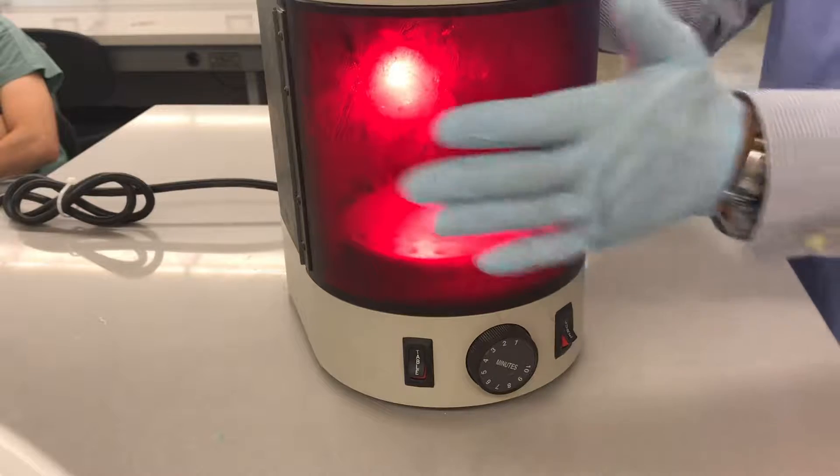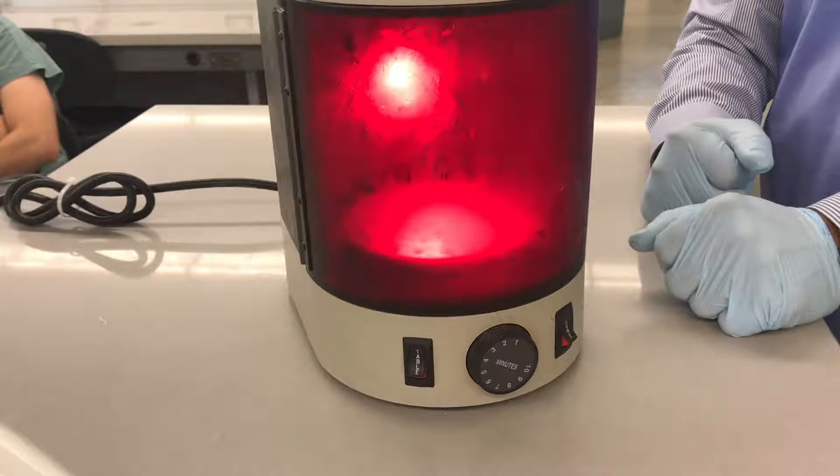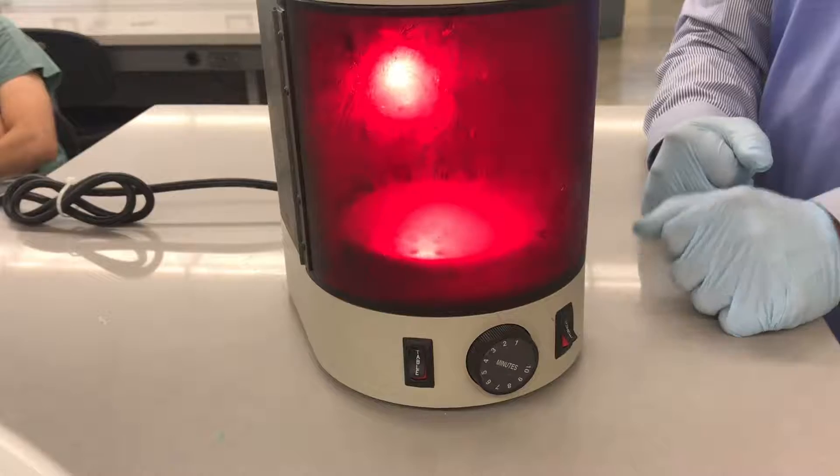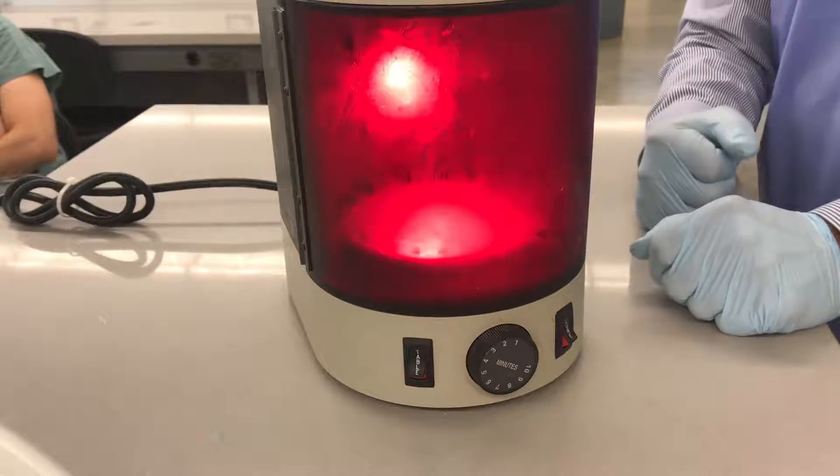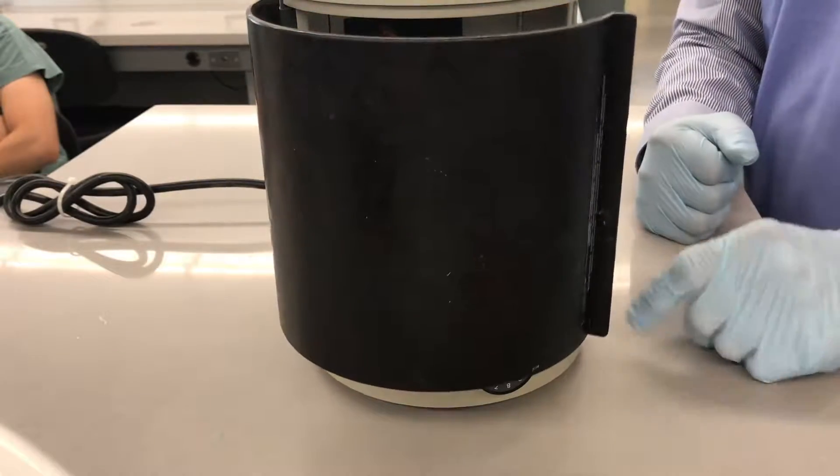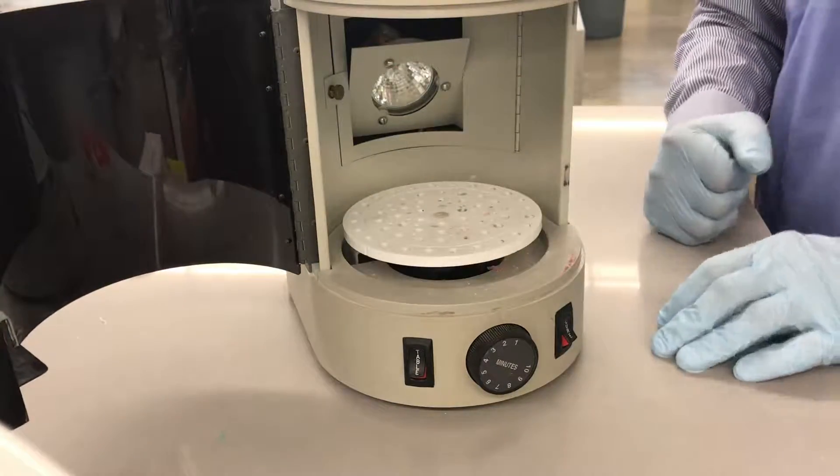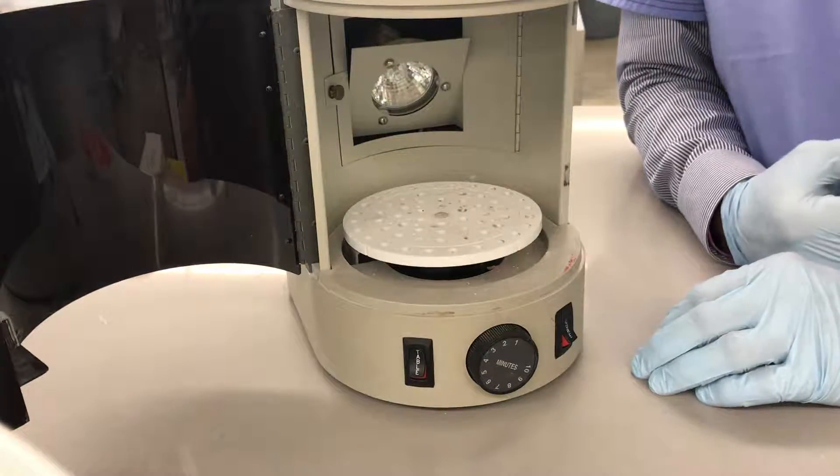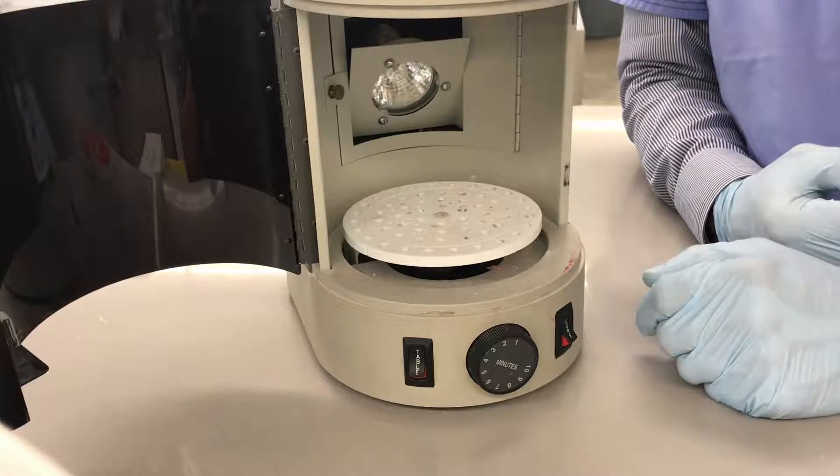So if we have our case in there, and I just remembered, I forgot to put a handle on it. And I opened the door, notice that the light bulb automatically turns off as a safety feature so you don't hurt your eyes.